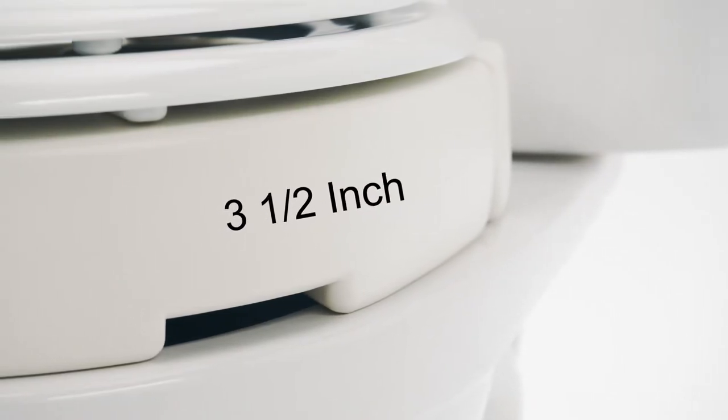Introducing the Deluxe Toilet Seat Riser to make toileting easier. Whether it's hard to bend down or struggle to get up from the seat, this product is a great help. It adds an additional 3.5 inches to seat height, reducing bending effort.